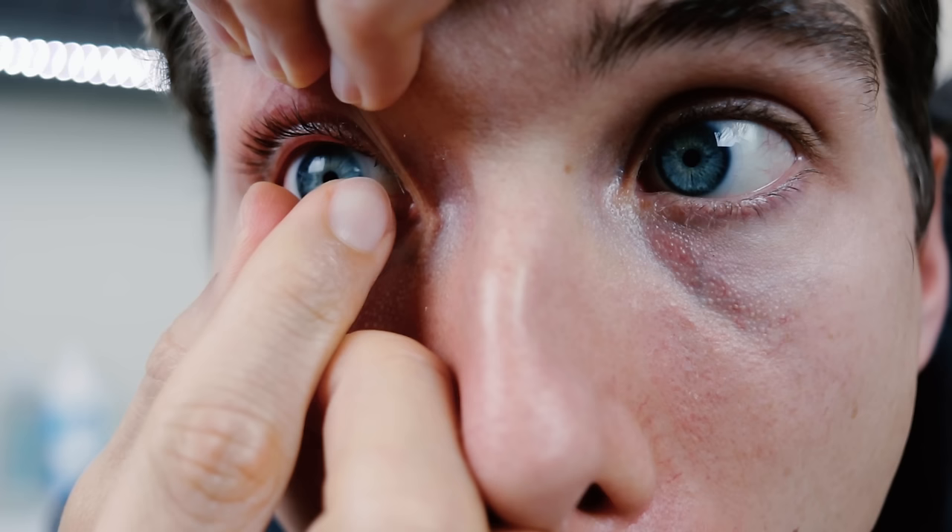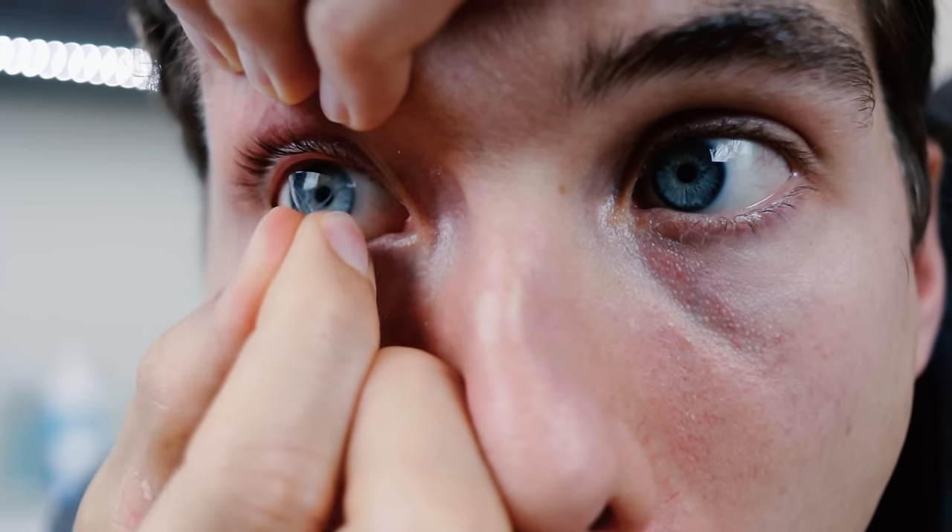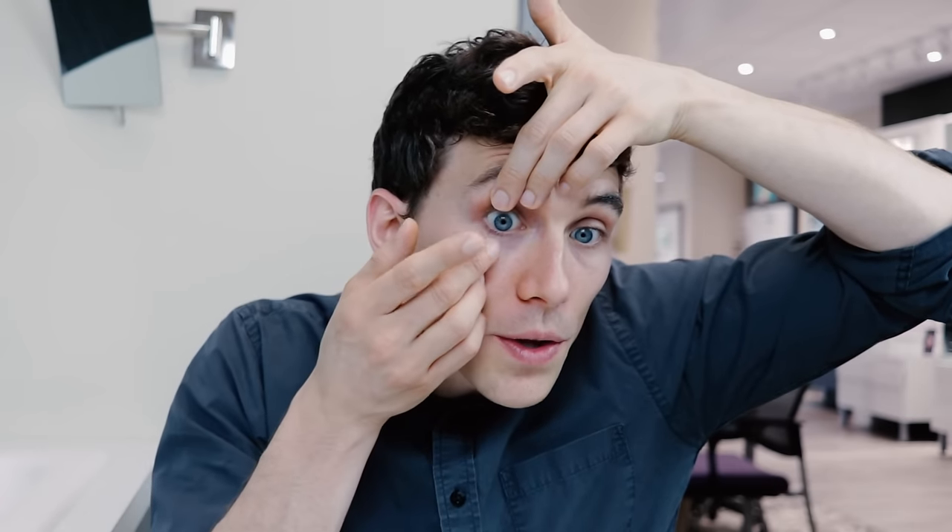When I prepare to take out my contact lenses, you can do it looking straight ahead into something like a mirror. I personally look upward just a little bit. When you're gripping the contact lens, you can go straight on if you want, but I prefer to grab the lower one-third or one-half of the lens because it just tends to flute and grab on a little bit better. Hold the upper eyelid, hold the lower eyelid, look slightly up, and then just pinch and the lens comes right off.